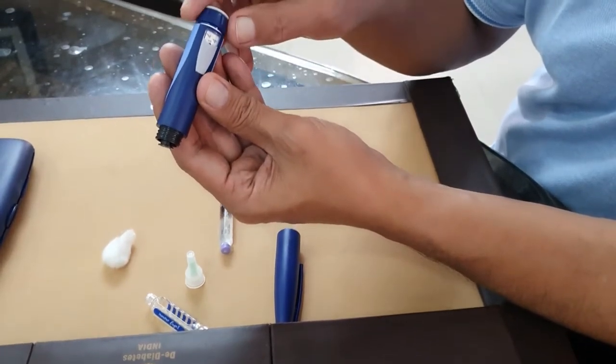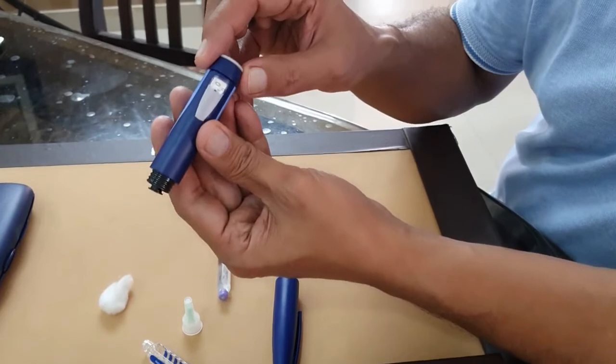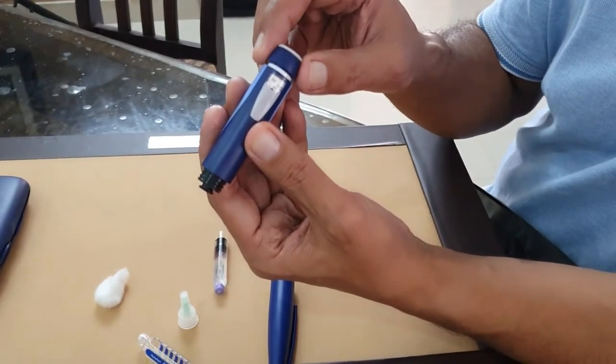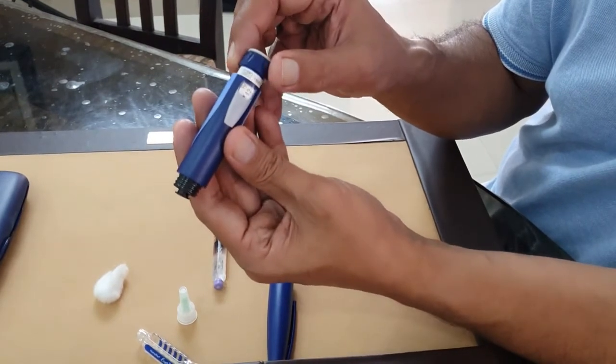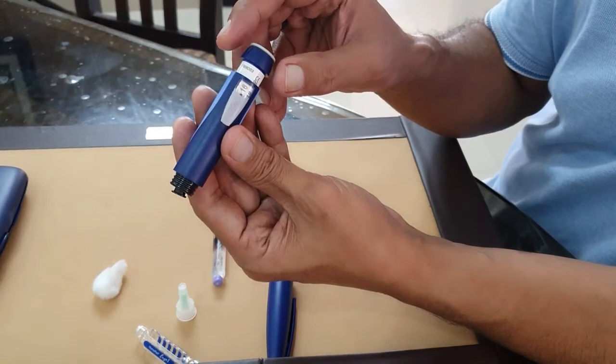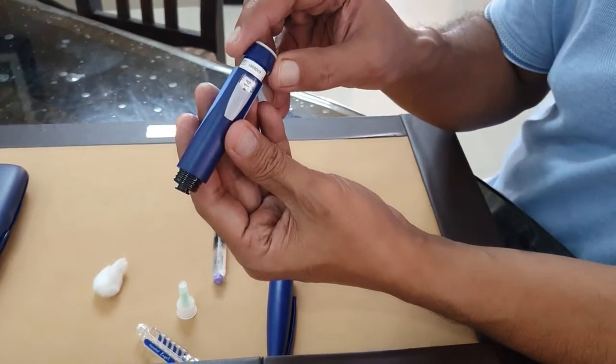Here there are markings - you can see them starting at zero, two, three, four, like that. Suppose you are going to inject 14, now 15, 16, markings are there like that.